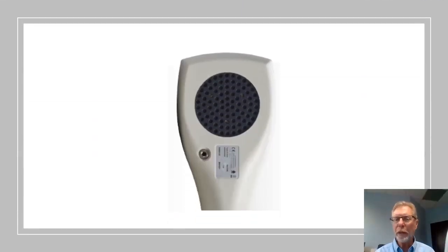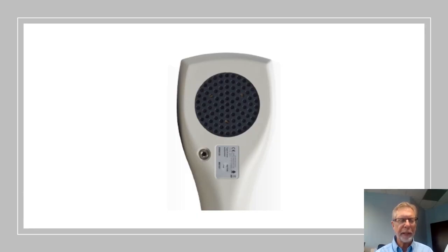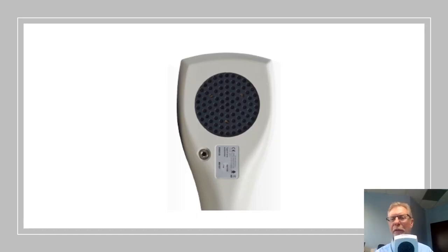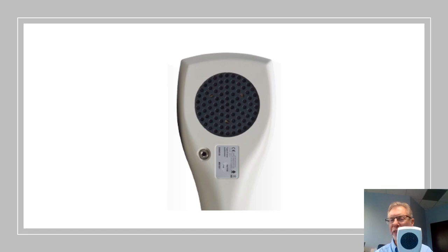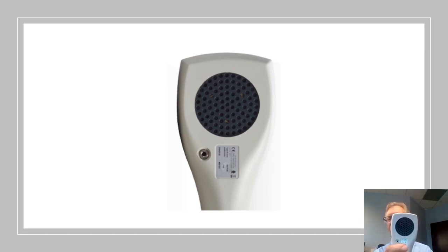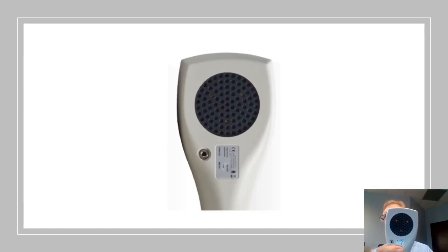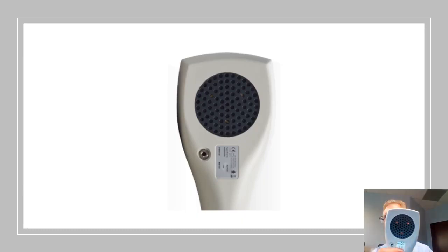There is one button that I didn't tell you about, and the remaining button is one that says light on it. So what do we mean by light? Well, if you look at the back of the instrument where the speaker is, and I push light, you see I have those flashing lights there. And that is called visual response audiometry, or VRA.